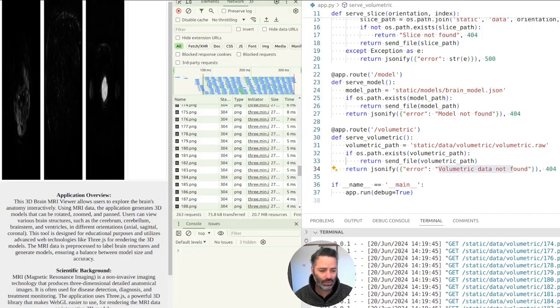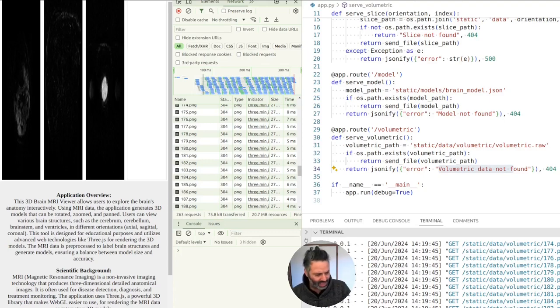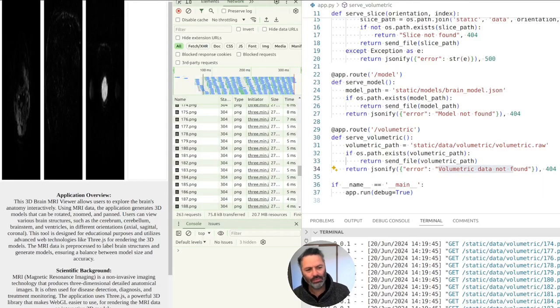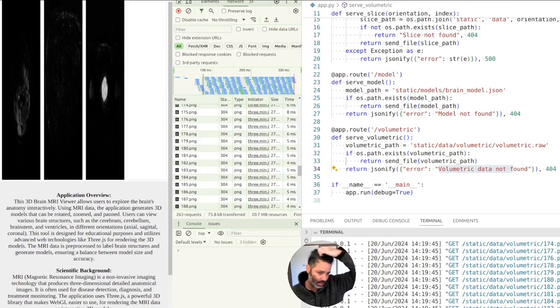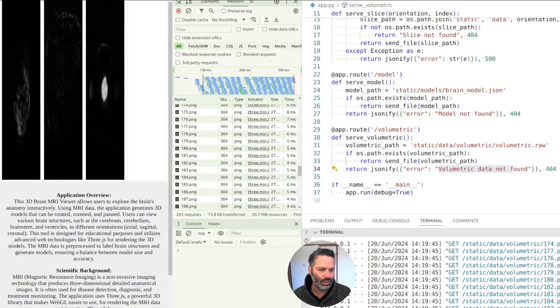Can we sort out the format of the data? We actually generated it ourselves in the preprocess Python script. Then can we load it in JavaScript so it actually renders on the front panel? You can process the data, import JSON, and save it as a JSON file which can then be loaded in JavaScript.